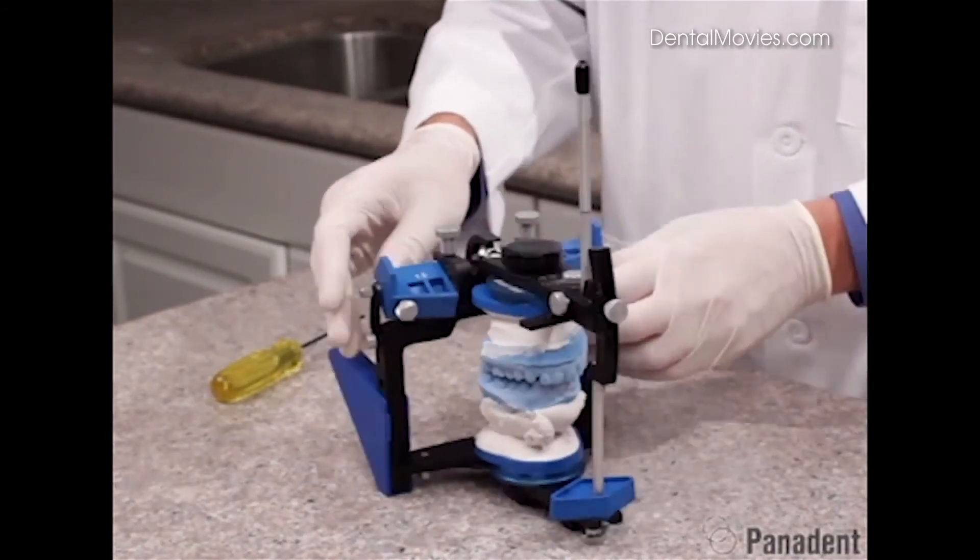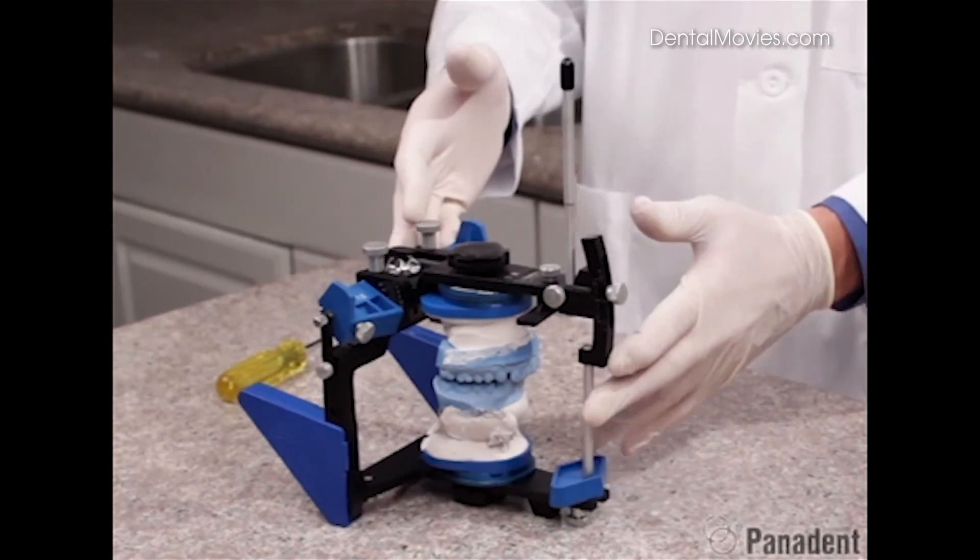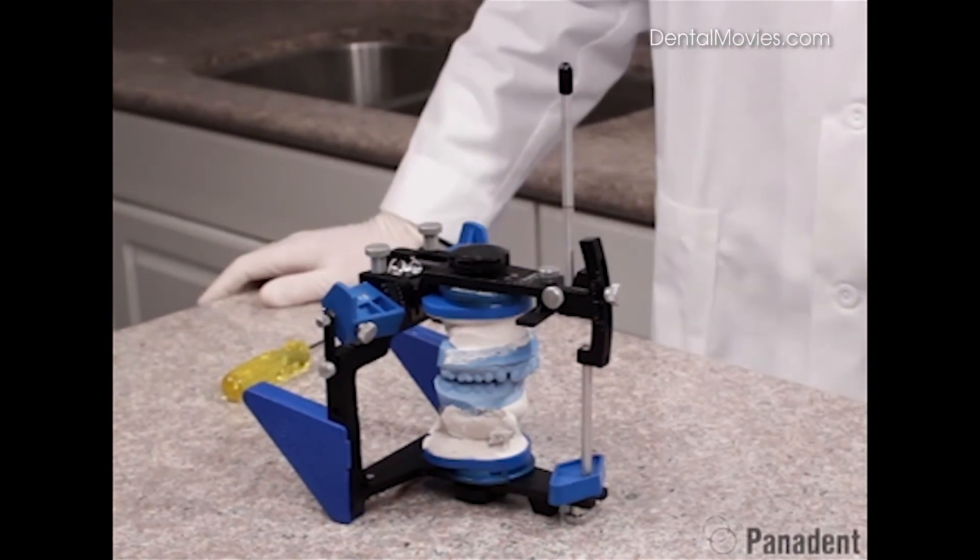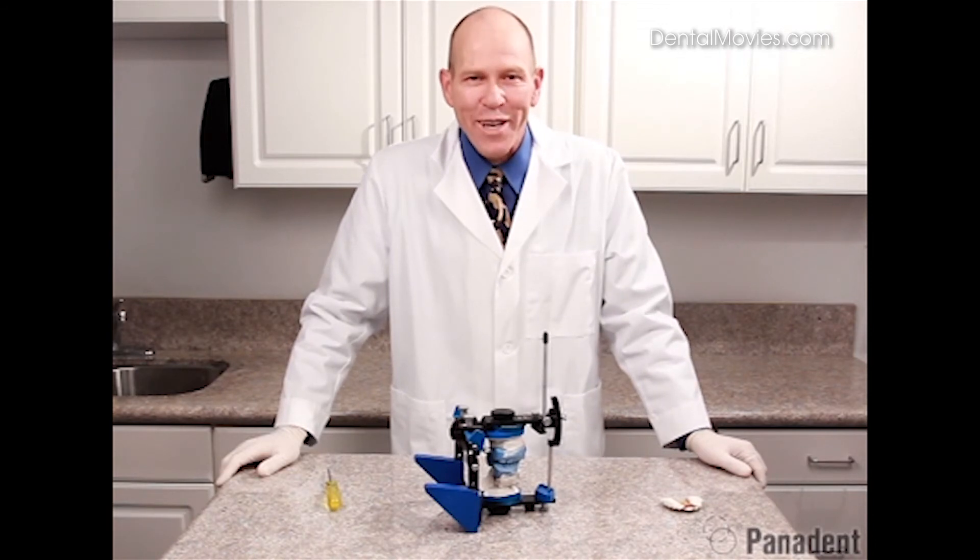We've now set our protrusive angulation into the articulator. And we can use this now to diagnose the cast for whatever problems the patient may have.